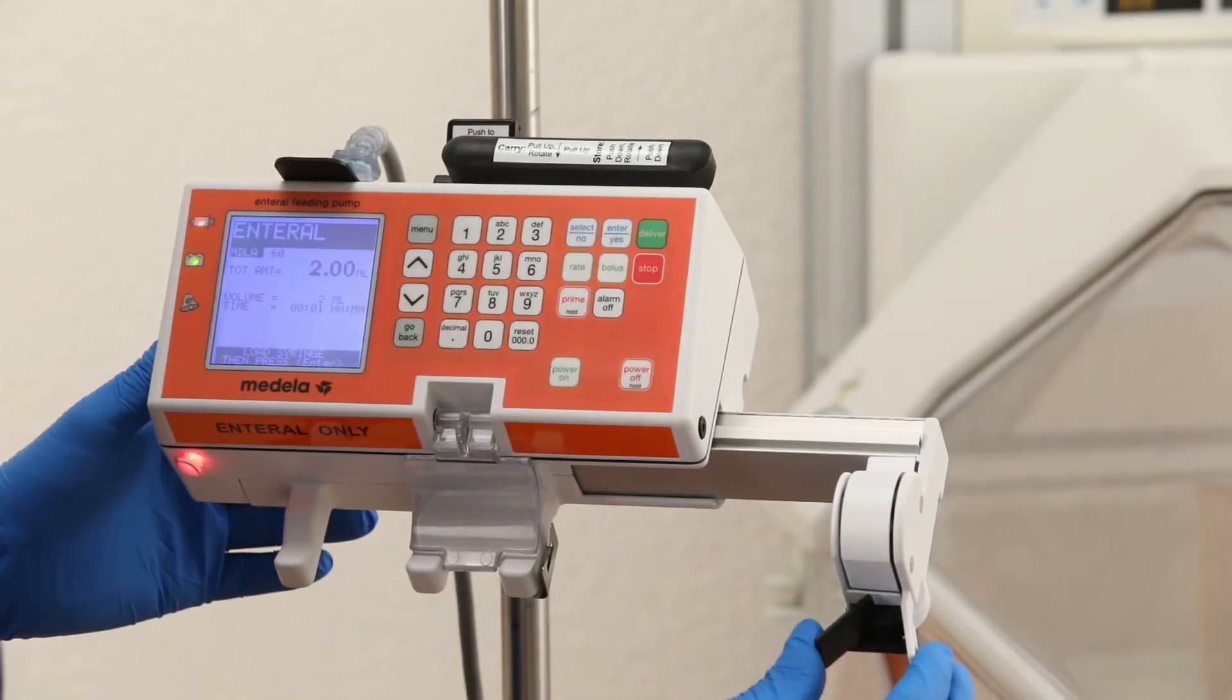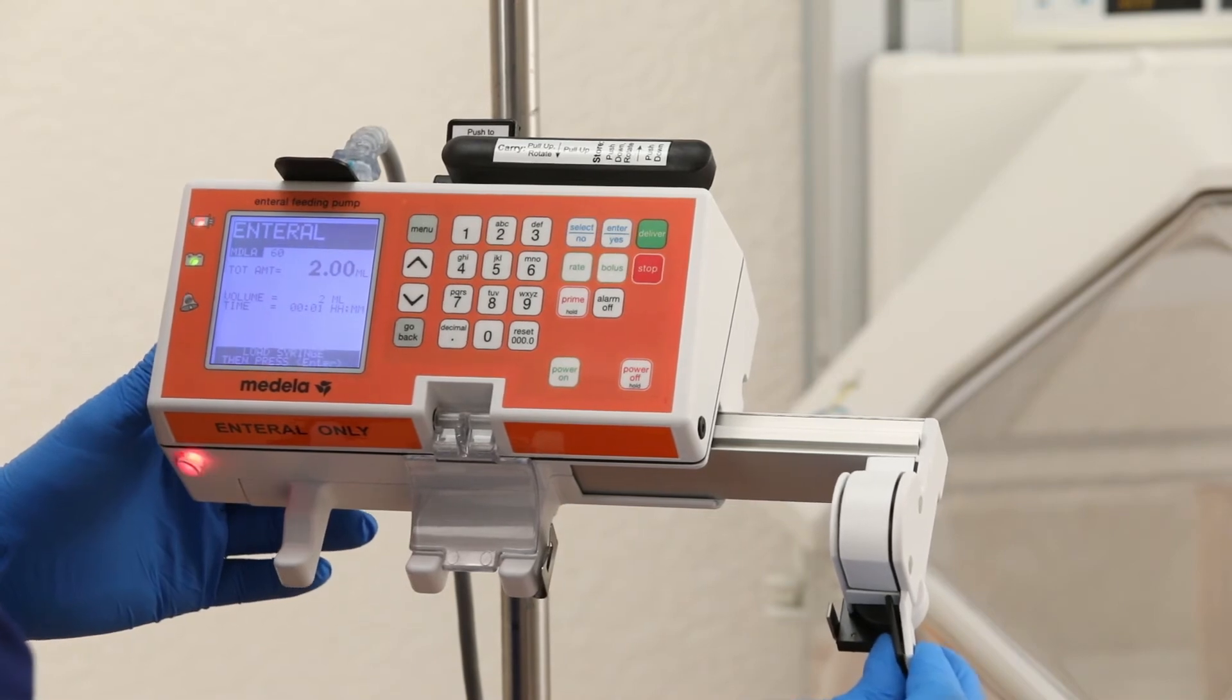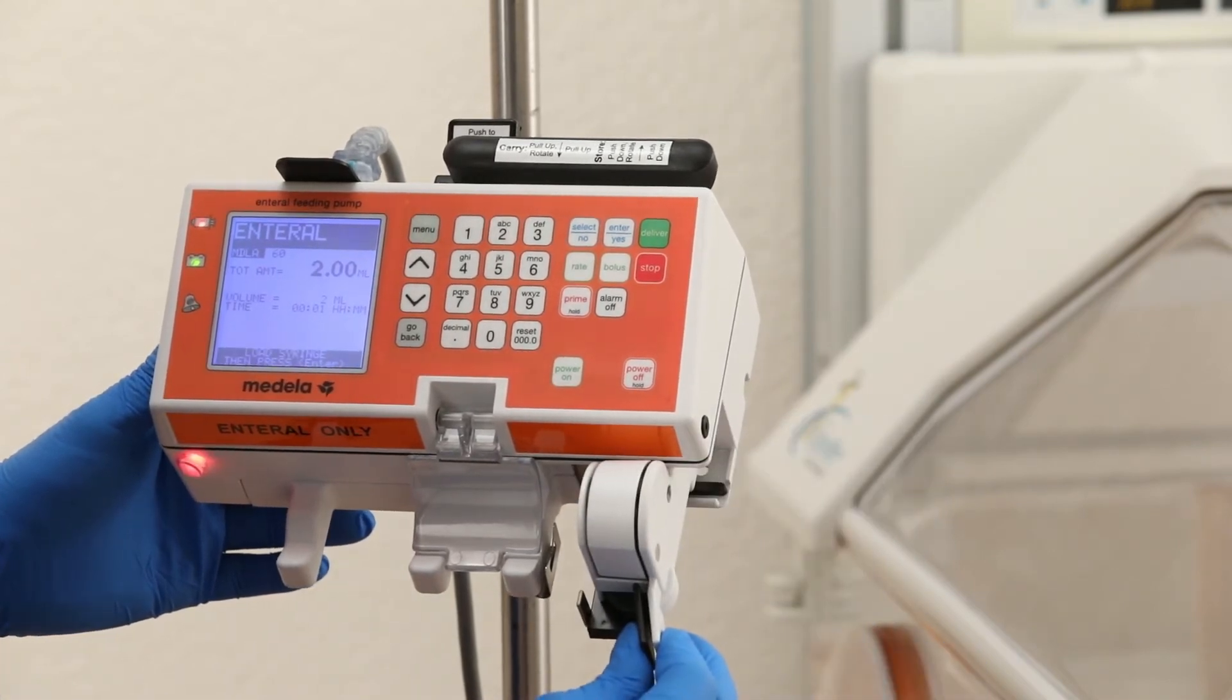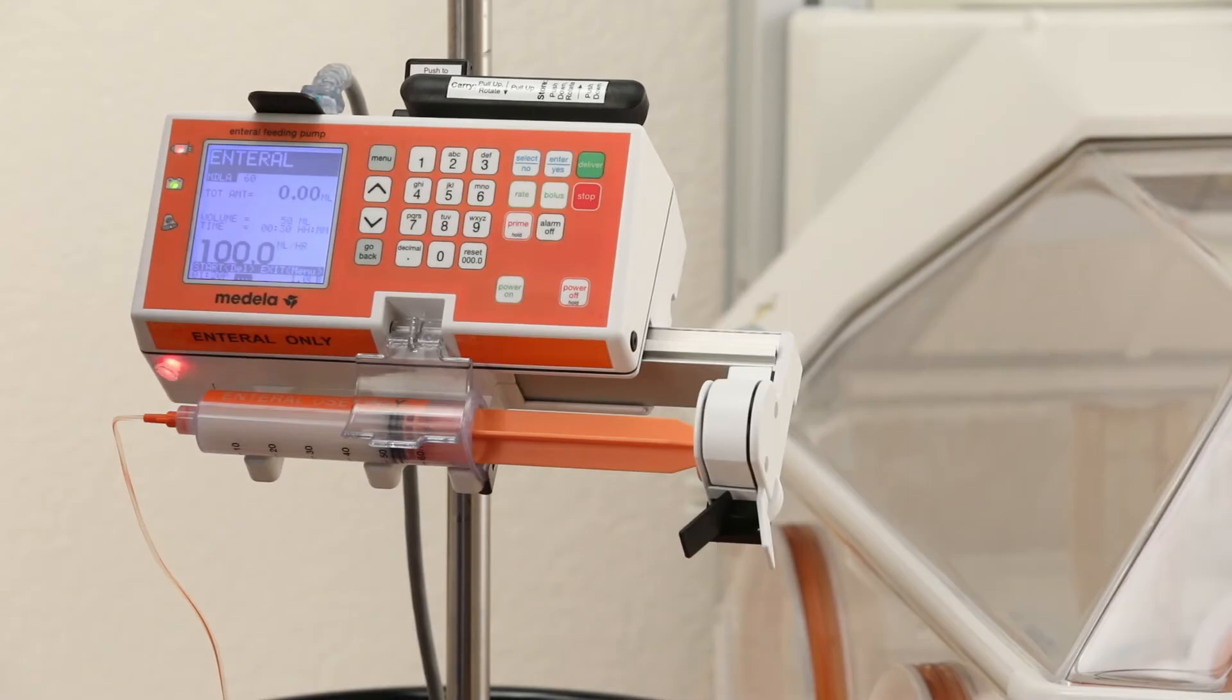When the pump is not in use, it is recommended to return the syringe driver to the fully inward position toward the left.